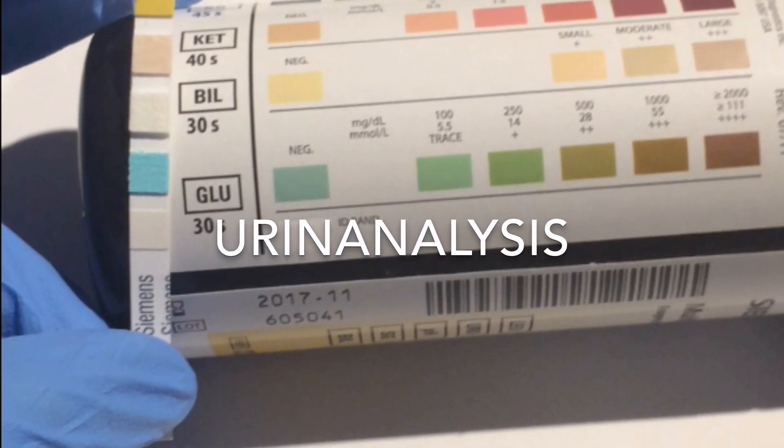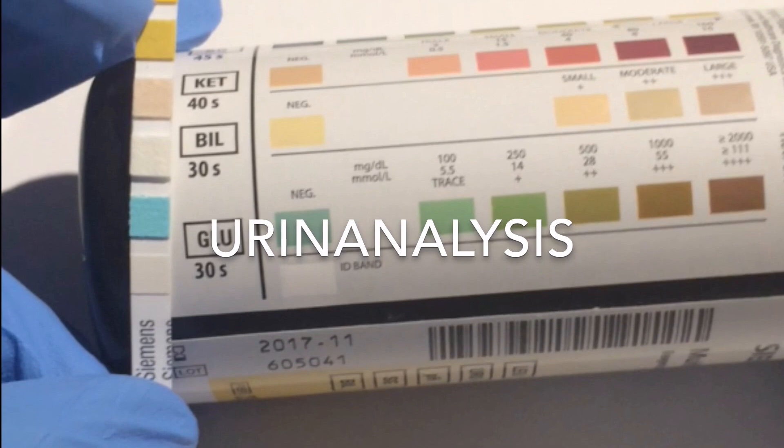Hi and welcome to LabBread channel. Today we will be doing urine analysis using the dipstick method.